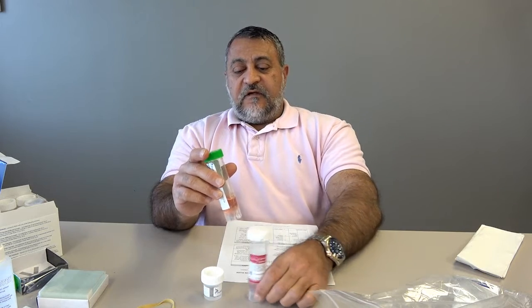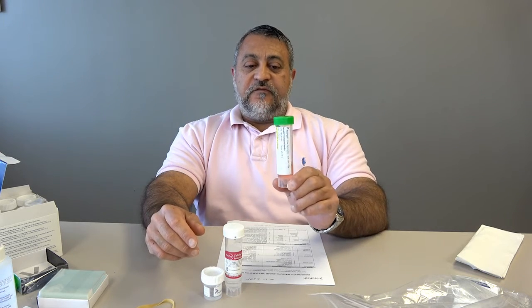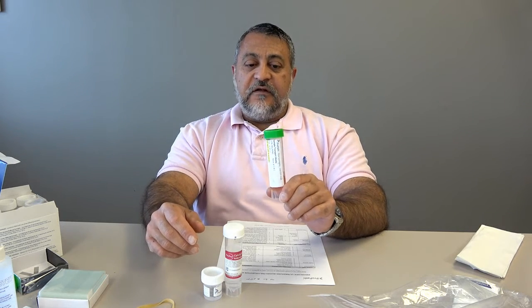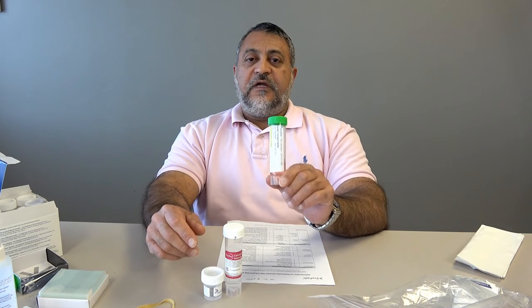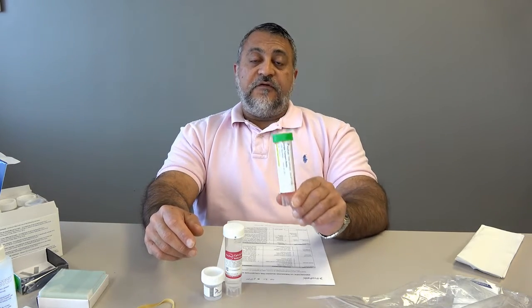The context is if you're worried or if you know that this patient has a lymphoma. This is solely used to be able to do flow cytometry. Now, you can use material in here for some other things, and we have done that. But this is a material that you're going to submit a pass or 2 passes at least fully if you want to do flow cytometry.